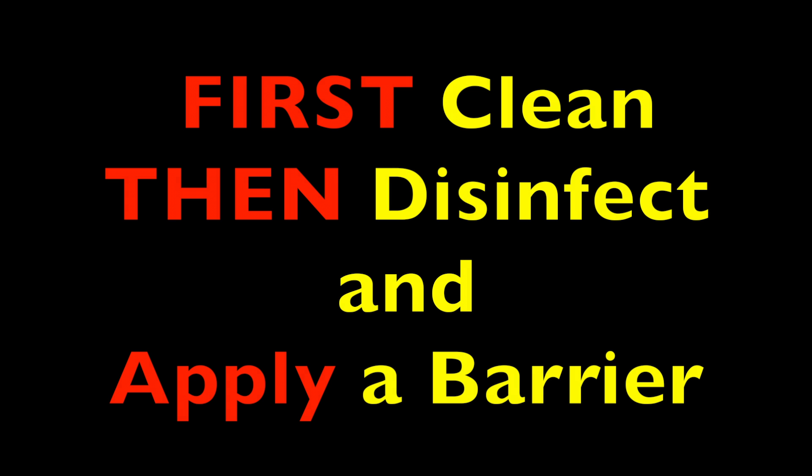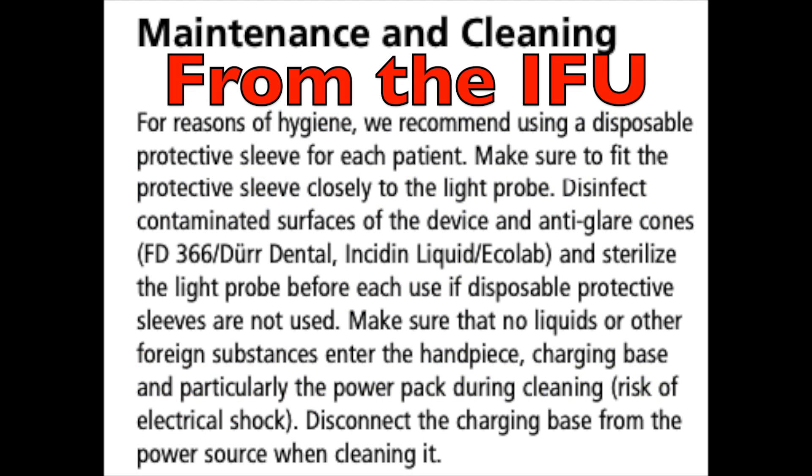There are three steps to follow. The first is to clean, the second is to disinfect, and the third is to apply a barrier. Always follow the manufacturer's instructions when cleaning and disinfecting the light, otherwise you may damage the light itself.